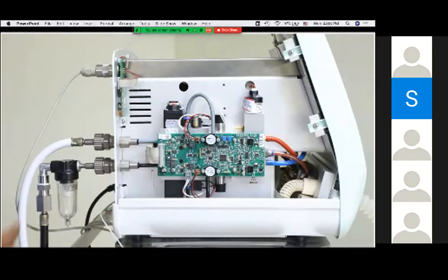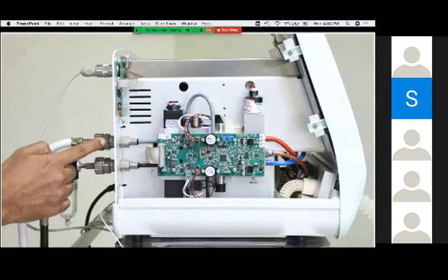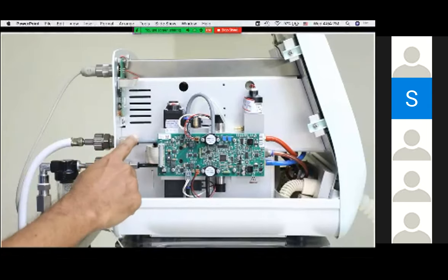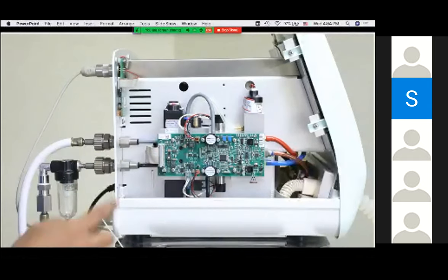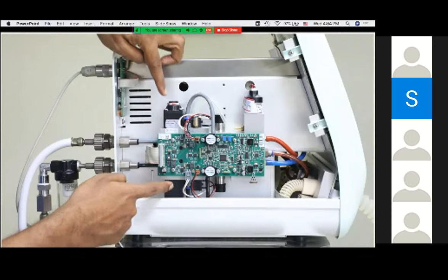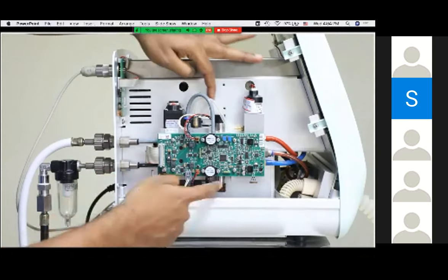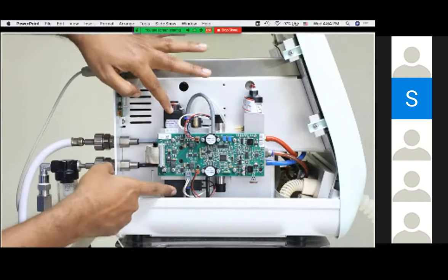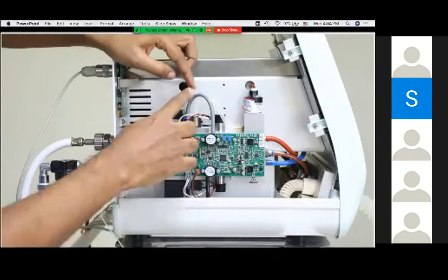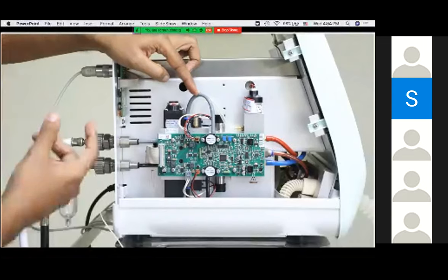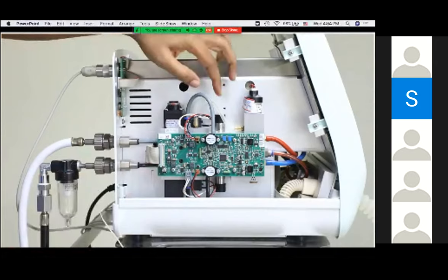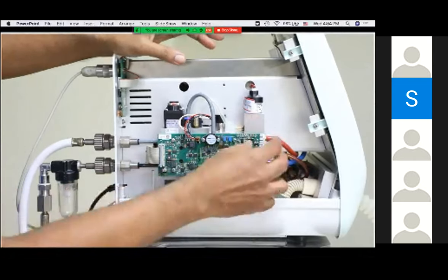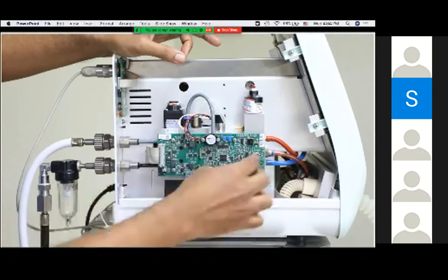We have opened up the side wall of the ventilator. Before oxygen and air enter the blender assembly, there are filters in the tubings that filter out particulate material. There are important valves in the blender assembly — the pressure regulator, and pressure gauges for oxygen and air. There are solenoid valves and proportionate valves. Air enters the blender assembly at a central pressure of 4 to 6 atm, and these two valves drop the pressure. A pressure sensor gives an alarm when pressure is inadequate, which happens when the central supply is not properly connected. The solenoid and proportionate valves regulate the precise amount of oxygen and air to be delivered.